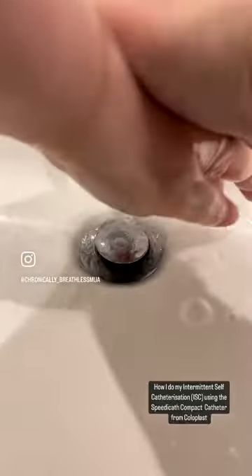Do this for about a minute and then rinse off, letting the water run through the fingers. You don't want to contaminate your hands again, so turn the tap off with your elbow if possible.